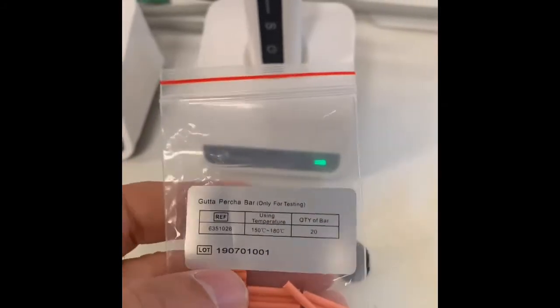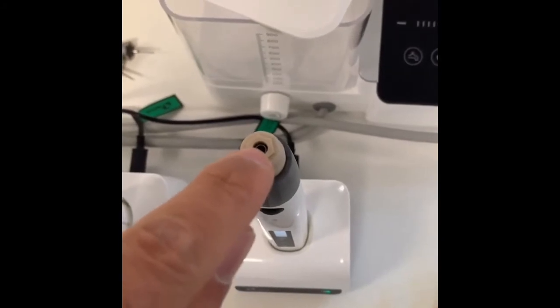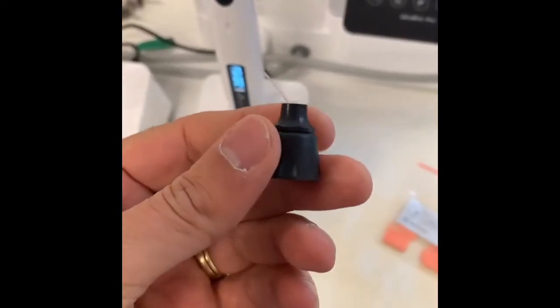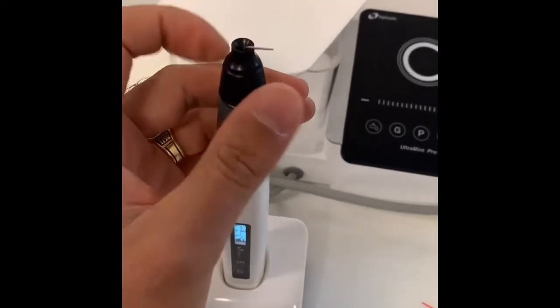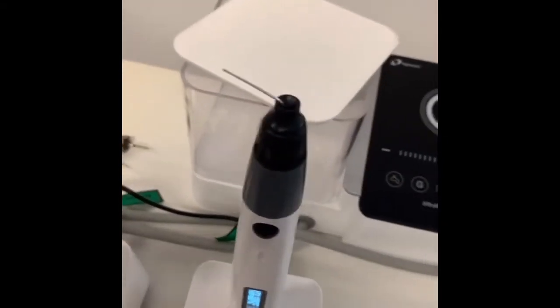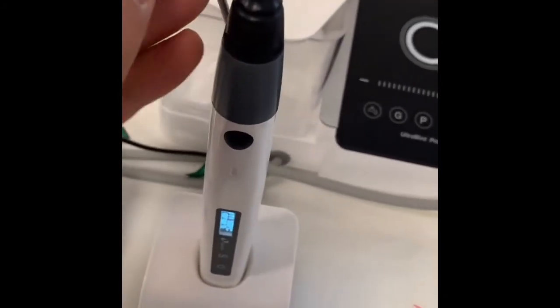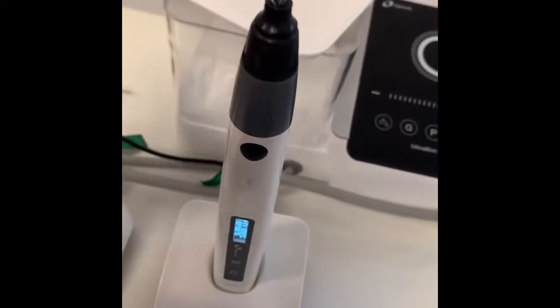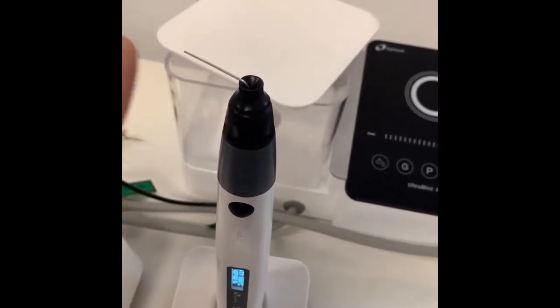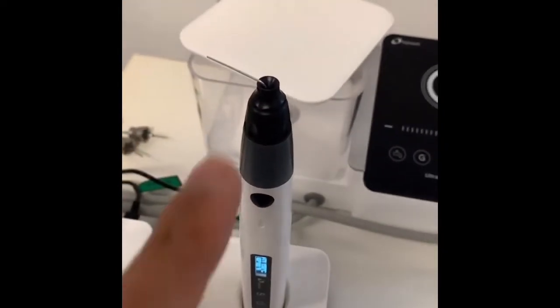To load the gutta percha, you just take one of these pellets and insert it into the handpiece from the top — it goes in here. Then you take one of these cartridges and easily screw it on to the handpiece. And you're set to go. If you need to bend the tip, you use this device. They've given you everything you need. Use this device to bend the tip however you like — whichever direction. Don't use your fingers; you will break the tip. And these are autoclavable.